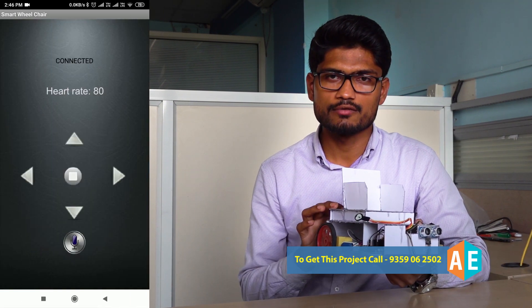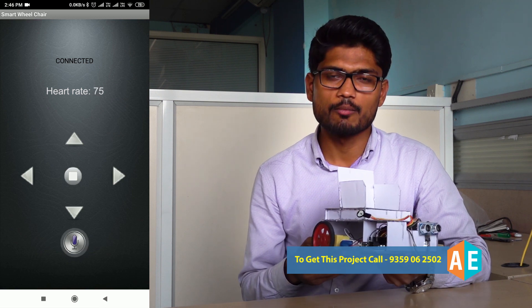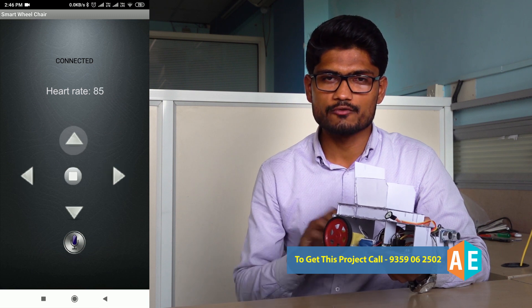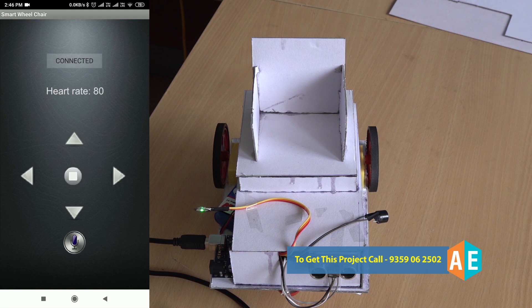We'll take a demonstration of this wheelchair. An Android application has been developed to control it, where voice recognition is done with the help of Google speech recognition. Once we open the Android application, it will automatically connect to the smart wheelchair, display a message that it is connected to Bluetooth, and speak out the connection status. The heart rate of the patient will be continuously displayed on the Android application.